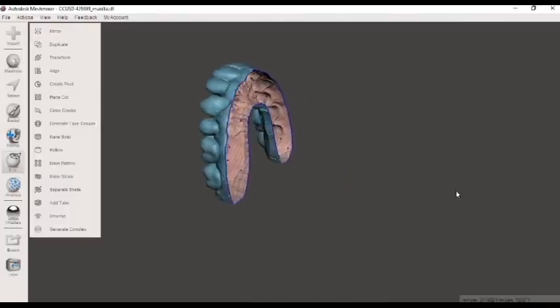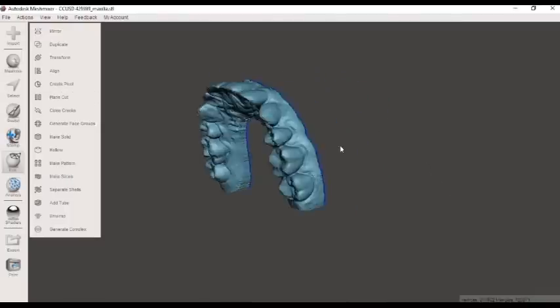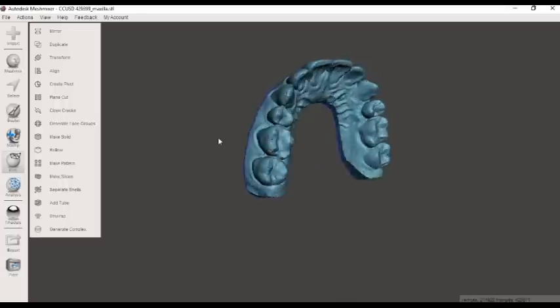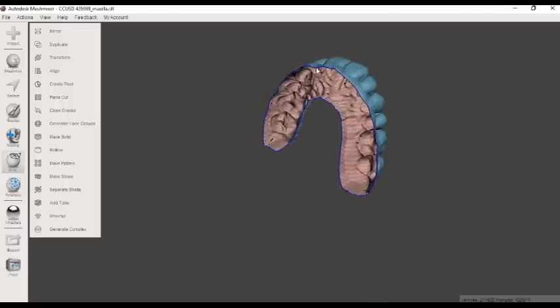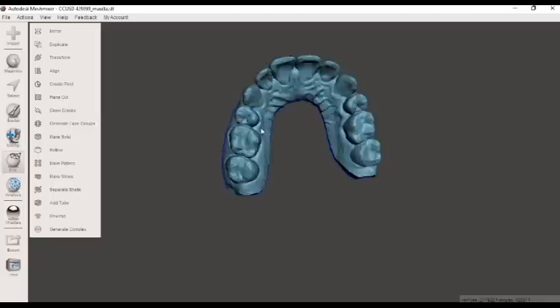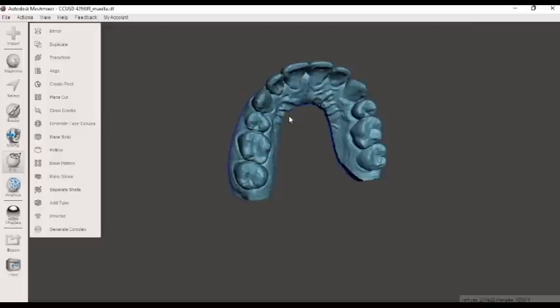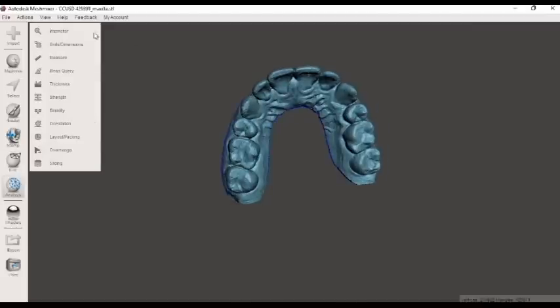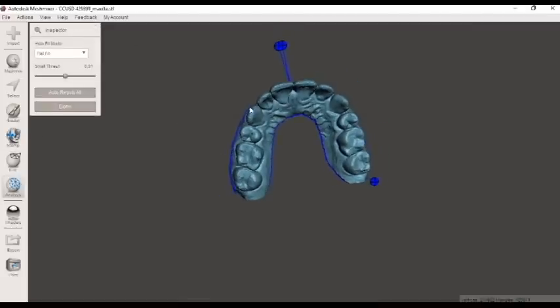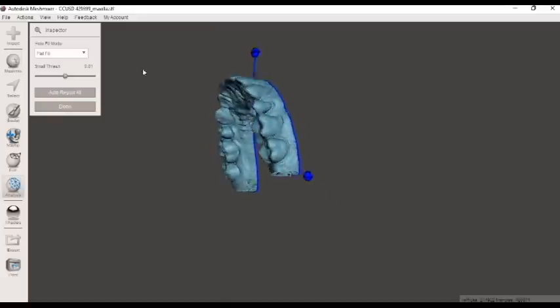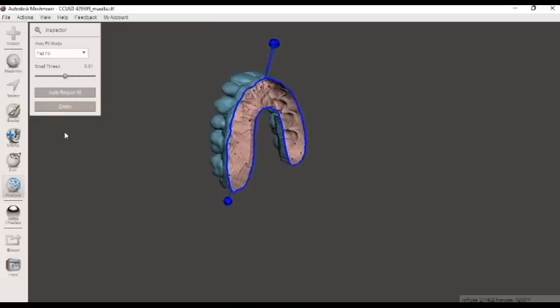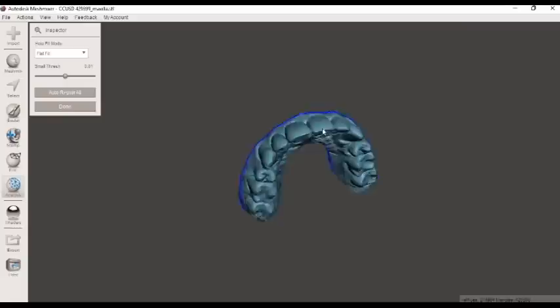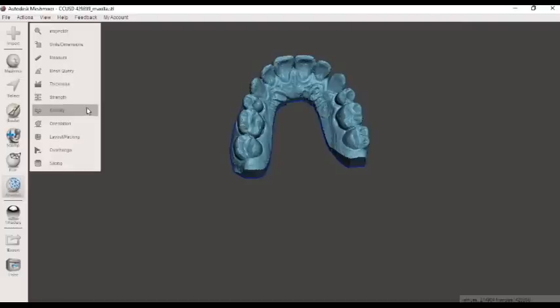There is our hollow model all edited, holes are filled, looks wonderful. So how do we create this flat base here? Well, before I create a solid model here, I am again going to use our inspector key. See how some more just kind of show up here. Let's see. Let's fill these guys. Excellent. The inspector key is your best friend. You can never use it too much. I will choose done.